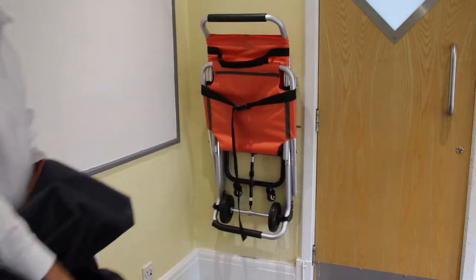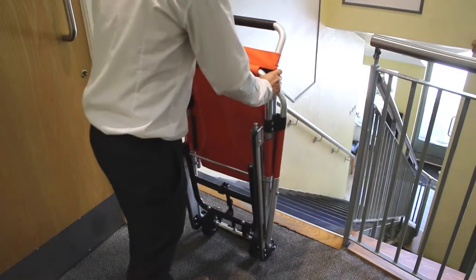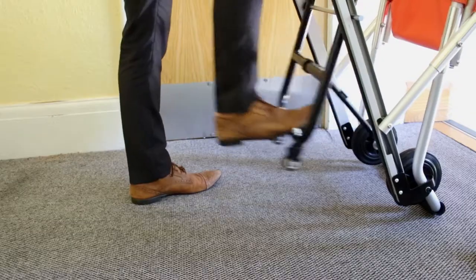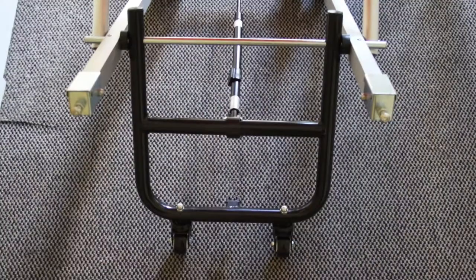The chair cover is easily removed so the chair may be lifted quickly from the wall mount. To prepare the chair for use, simply undo the quick release belt buckle at the back and the chair opens up. Whilst holding the handle, use one foot to easily deploy the rear stabilising wheels.